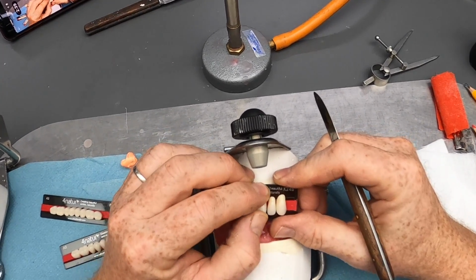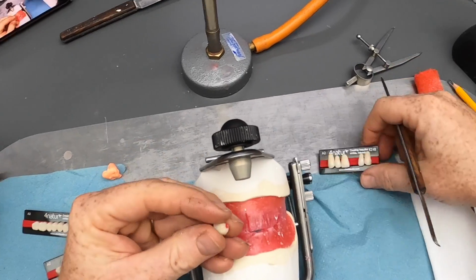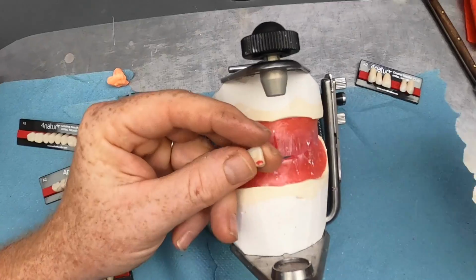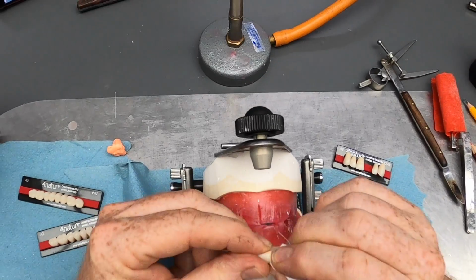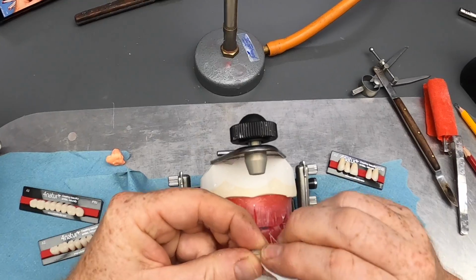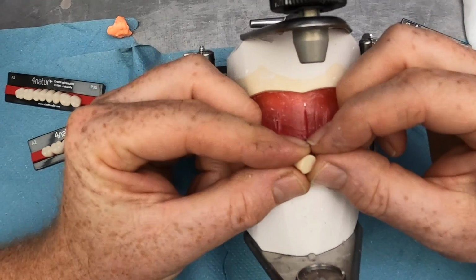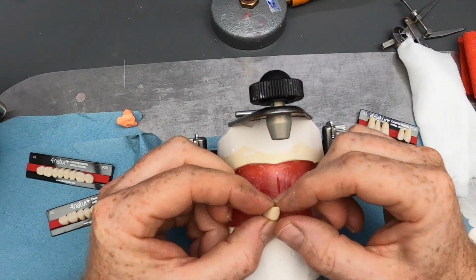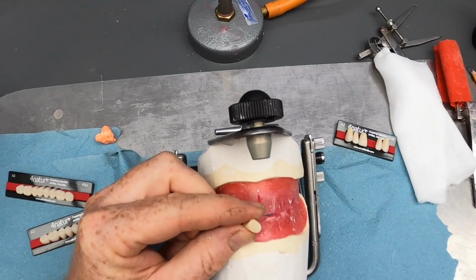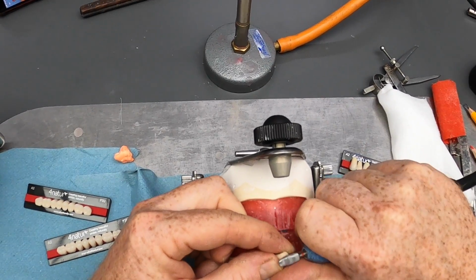To note, when you take your teeth off the card, they're held onto the card with a little bit of gooey horrible wax. That wants removing, because when we come to carve the wax later, we want a nice hard wax, not this sticky, gooey, horrible stuff. And you'll also see when you look closely at the surface of the artificial tooth that it's almost got a glazed-like appearance.